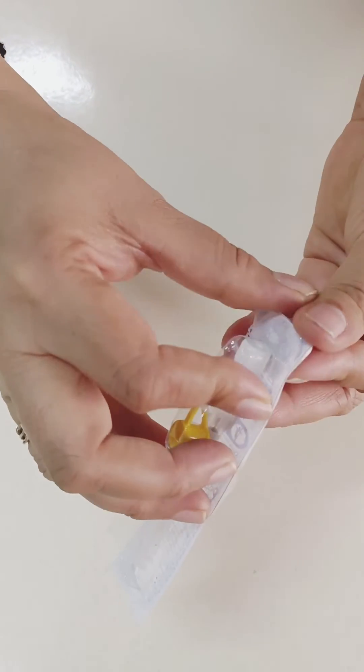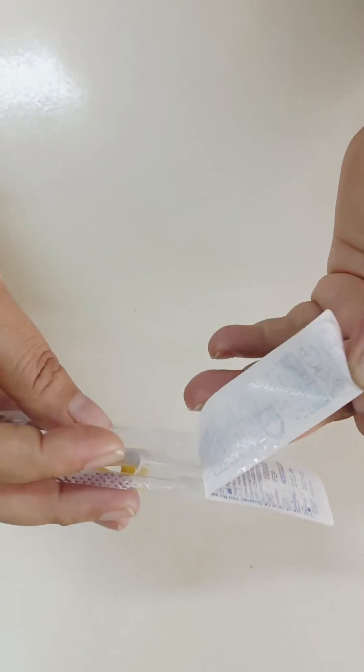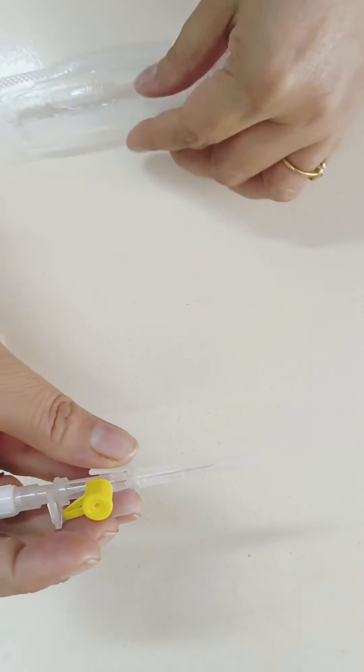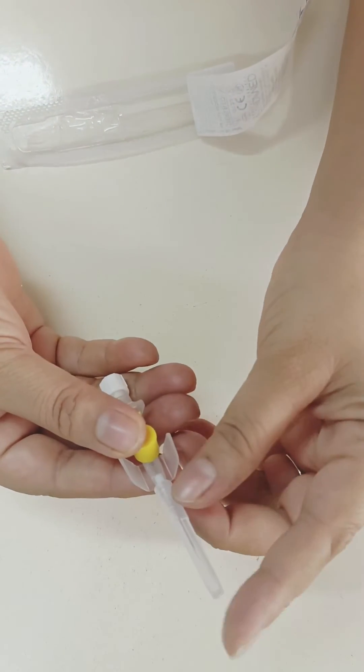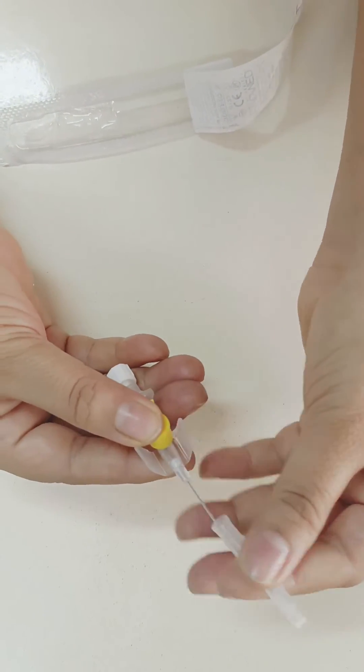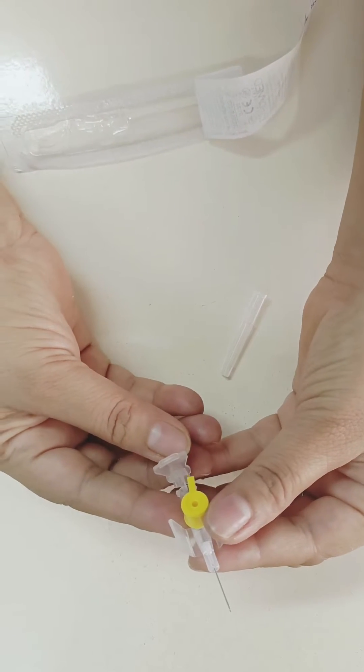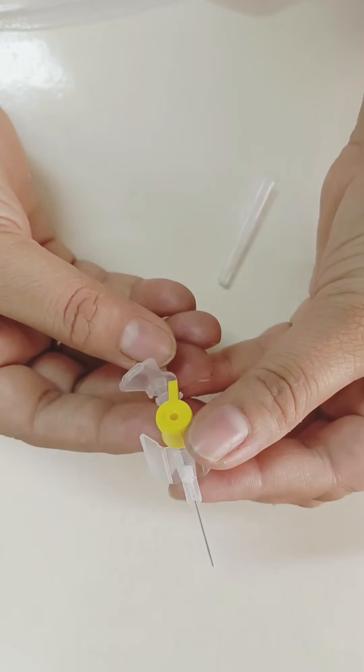Let's open it. This is a cap. See this, there is a needle inside it, you can see this.